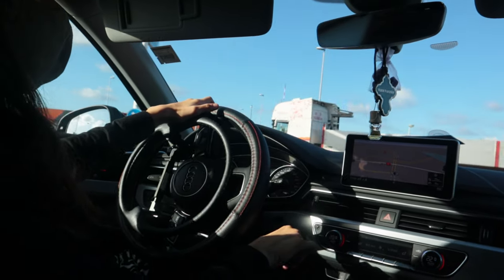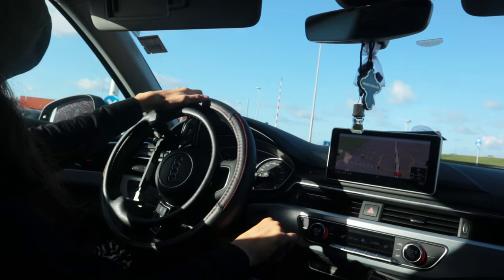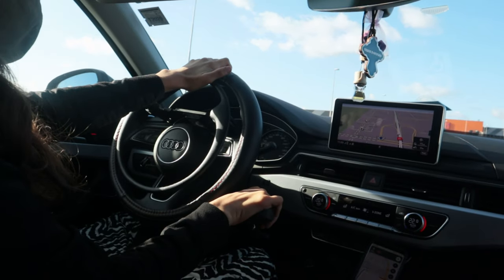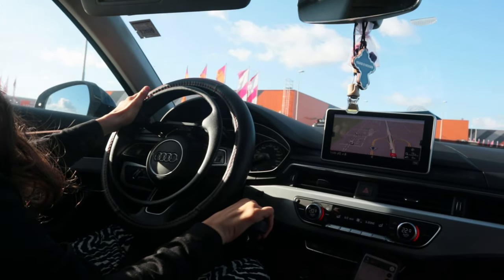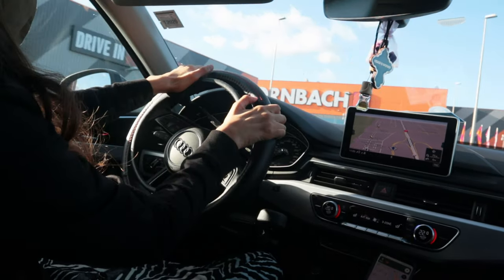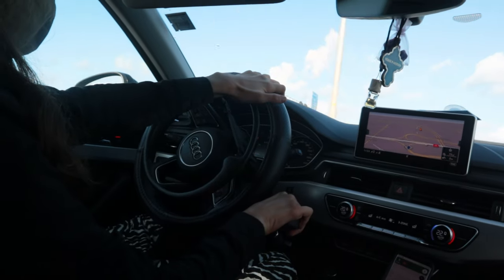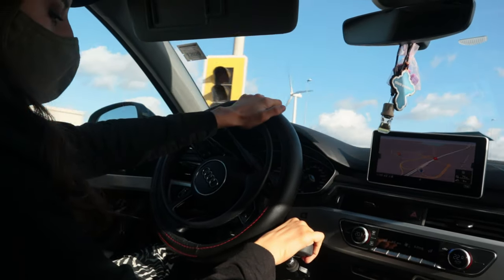As you can see, the rest doesn't make any difference from normal driving. The only thing is that my gas has perhaps a three-second delay compared to the pedal gas, and that means I need to react a bit faster to know when to press my gas. But that's all — the other things don't make any difference.